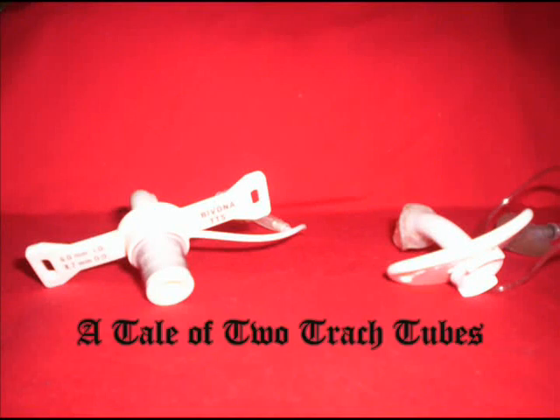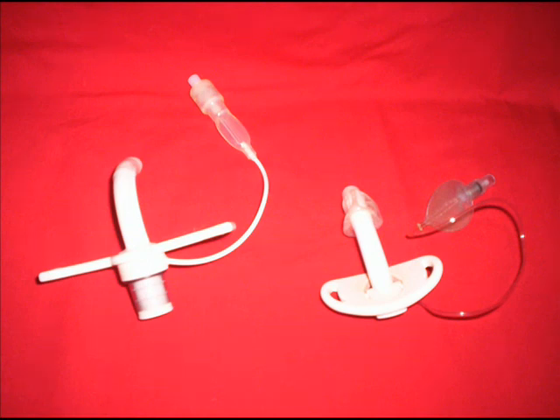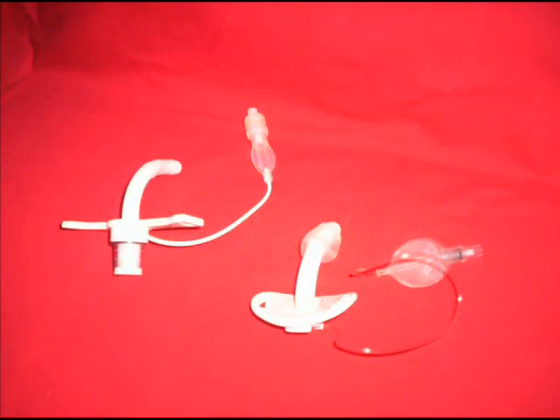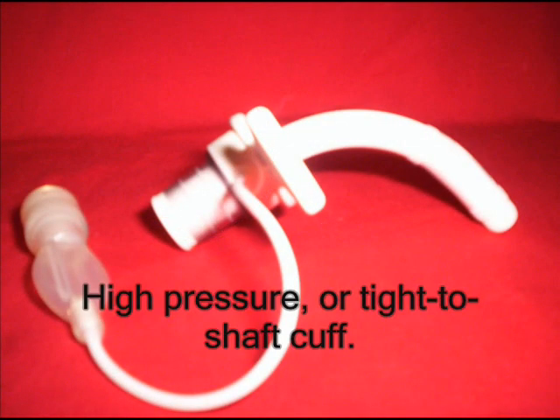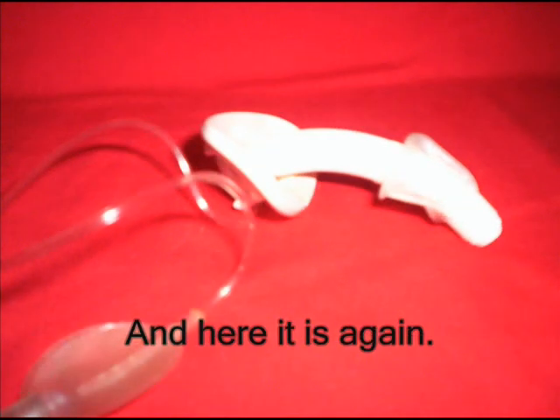Hello and welcome to Tess's house. Today's blog will be a little different because we won't be sitting around the kitchen table drinking coffee. I wanted to spend time explaining two different types of tracheostomy tubes — the function of each and the various advantages and disadvantages. What you see me doing here is going through my personal museum of old tracheostomy tubes, which I keep around to demonstrate to other people who may be working for Tessa how to use them and why.